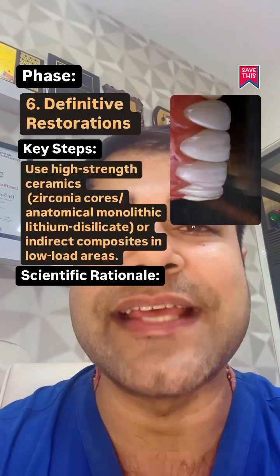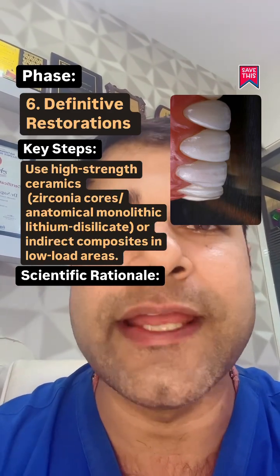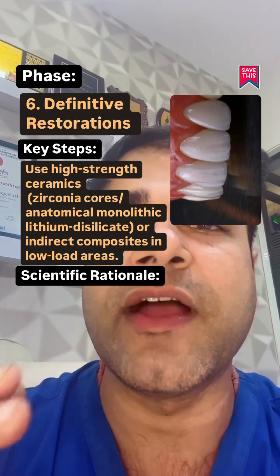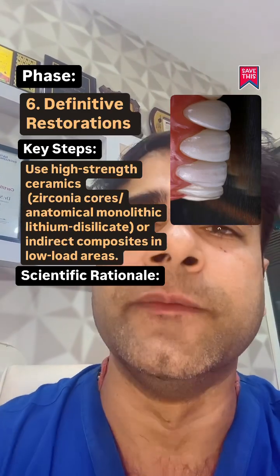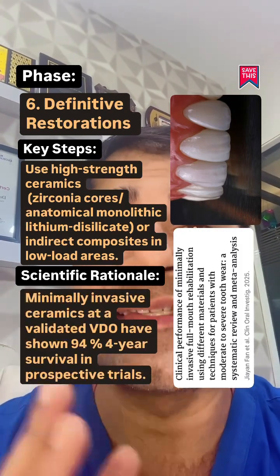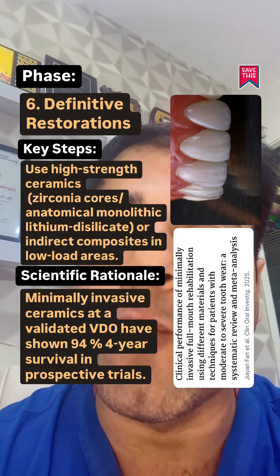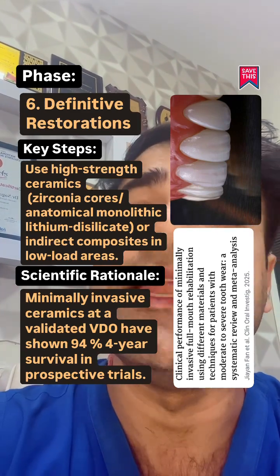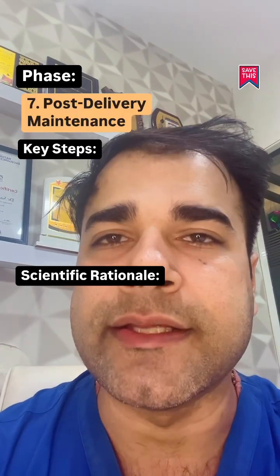Definitive restorations: use high-strength ceramics or indirect composites in low load areas. Copy the provisional occlusal morphology via silicone indexes or digital design transfer. Minimally invasive ceramics at a validated VDO have shown 94%+ four-year survival rates in prospective trials.